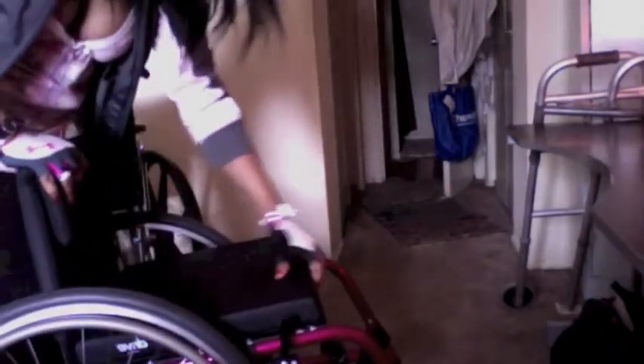Let's get into how the Quickie works. I'm gonna sit on my bed here to show you my wonderful chair. This is how it looks — I had it painted. There is a little Quickie GPV sign there. It's extremely light for a chair; I can lift the entire chair with one hand.